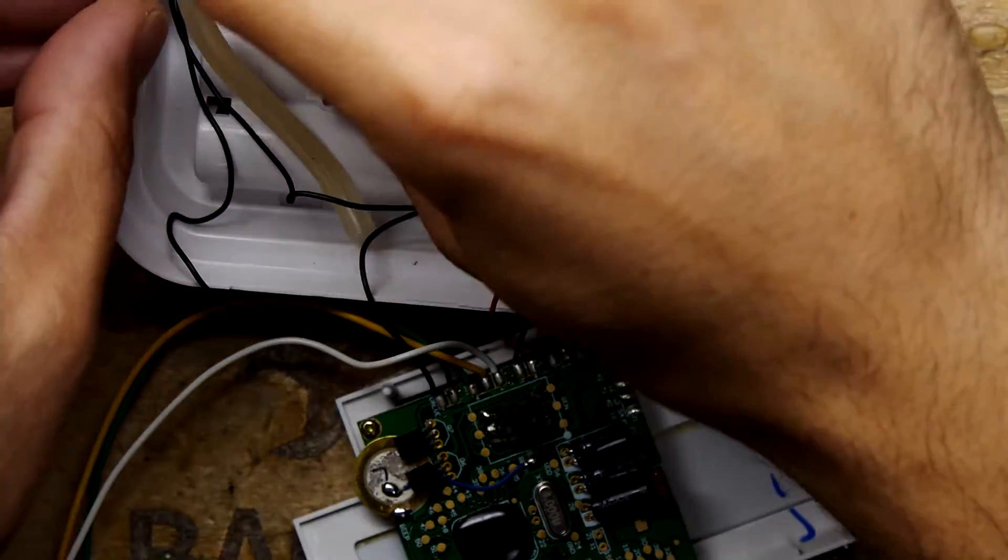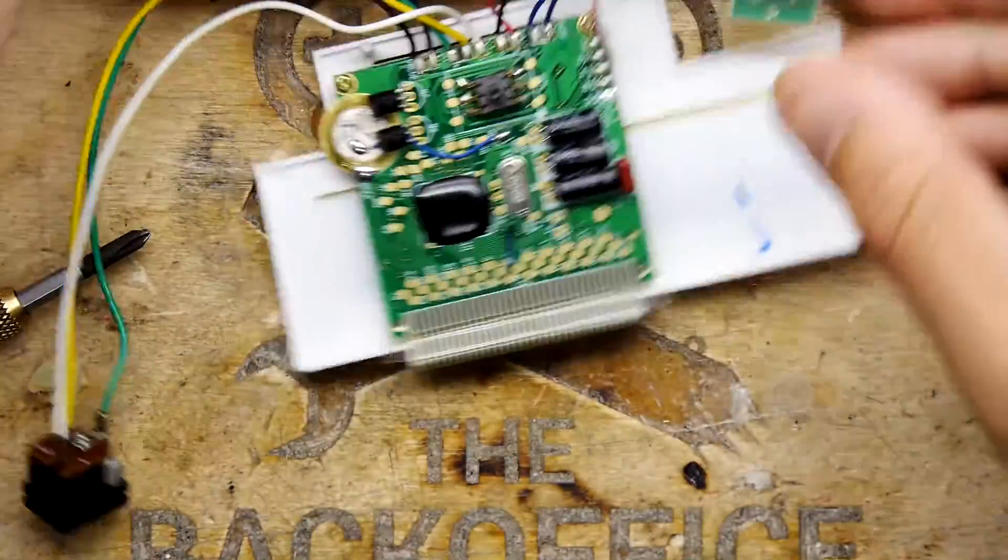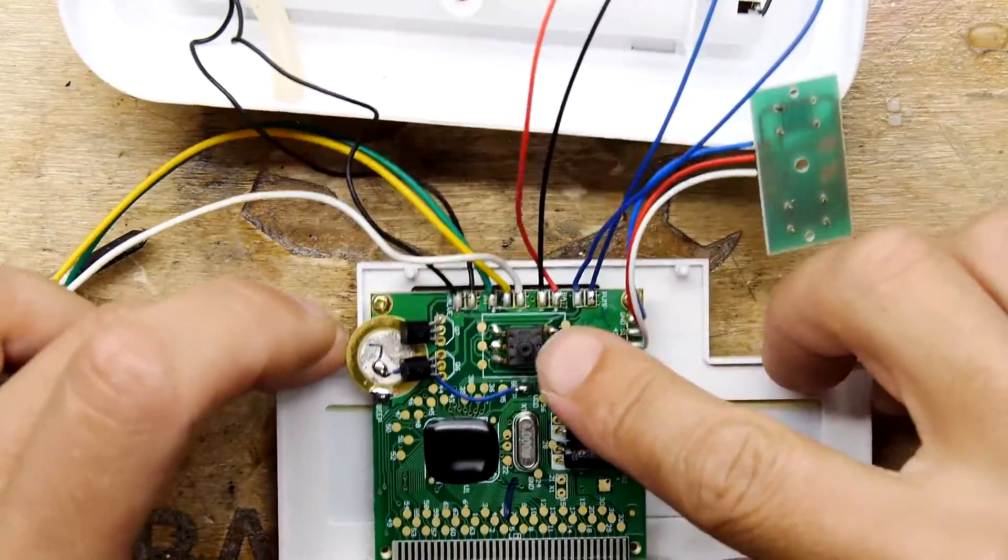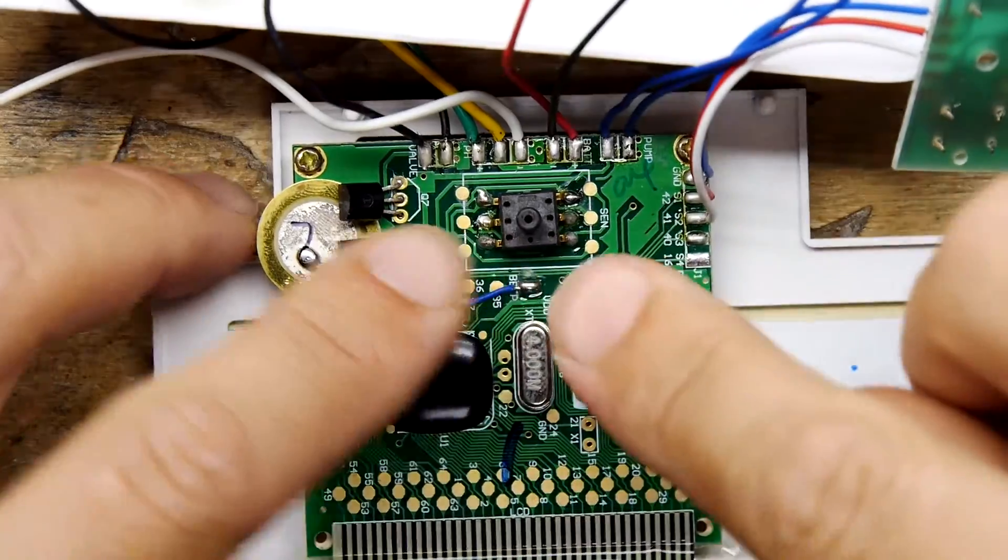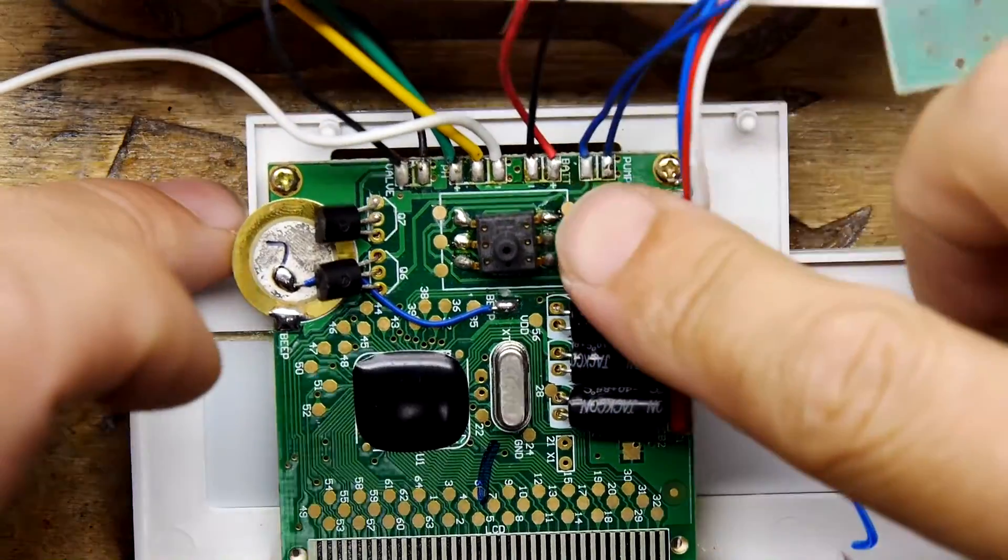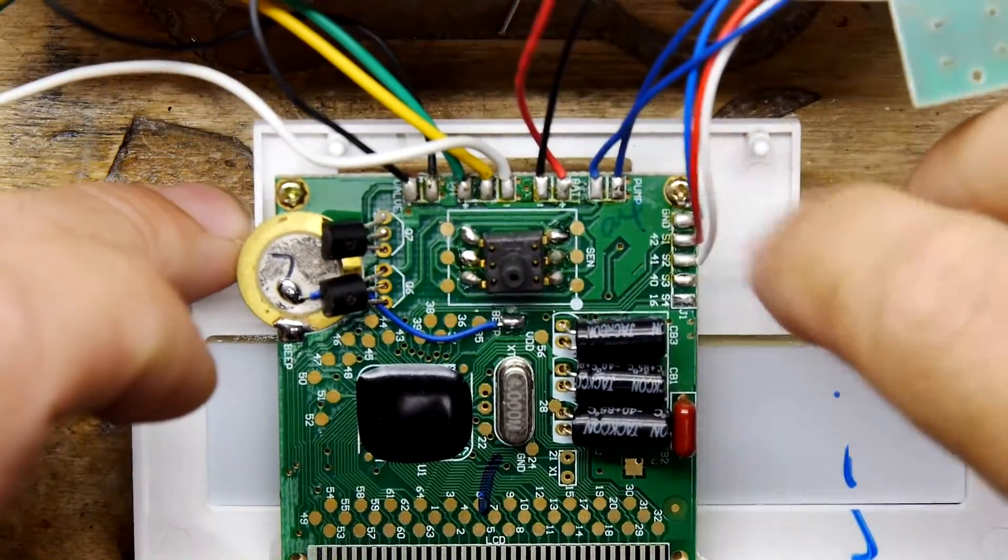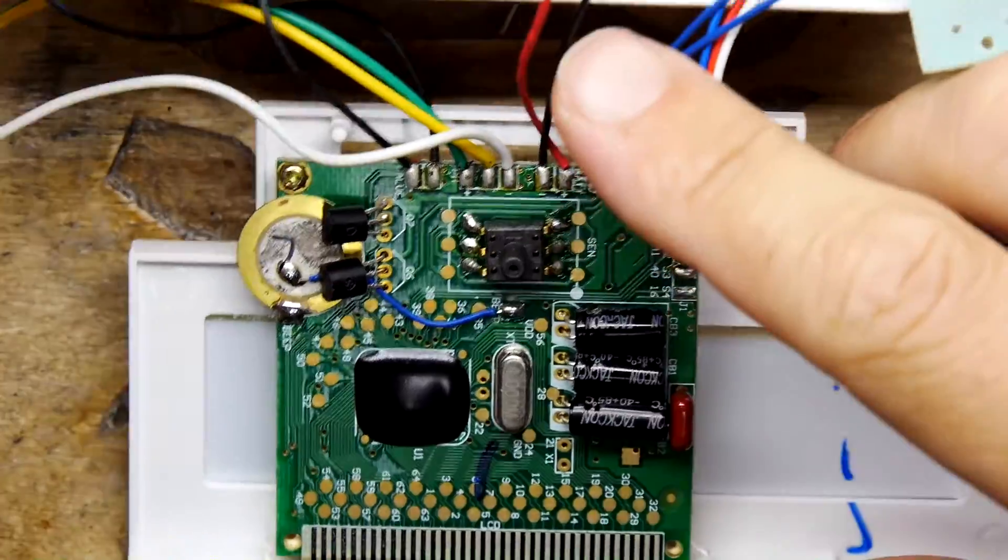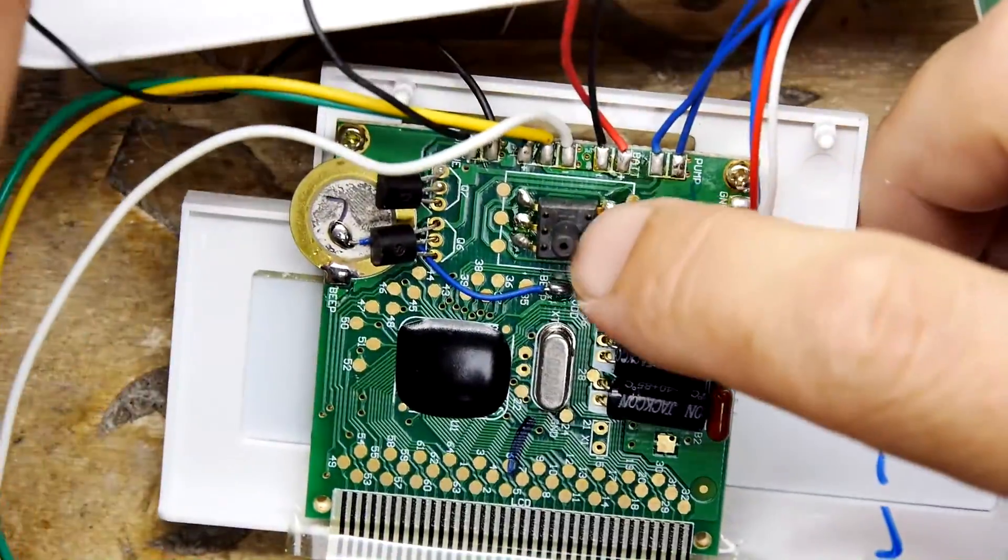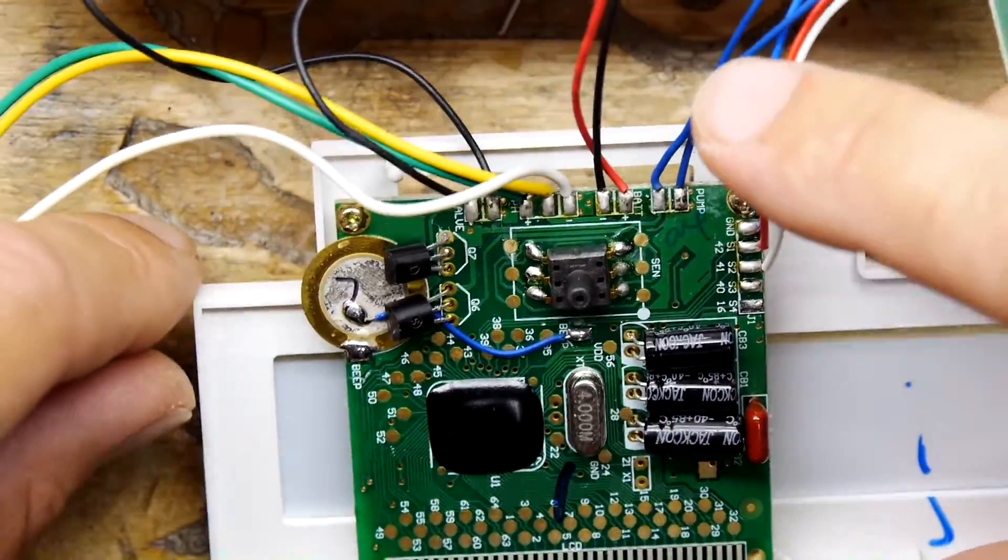Right. And I want to show you something else on the PCB right away. That is cool as hell. Now I've got a load of these. I've used these in the past. These are pressure sensors. And you can see the little pipe just goes on the end of that. And they work in different ways.